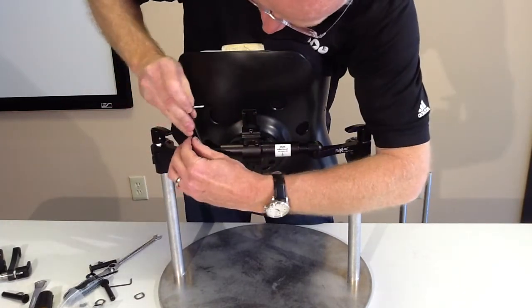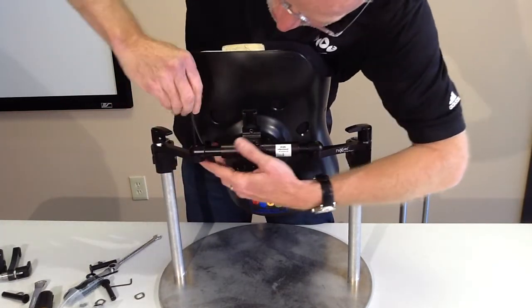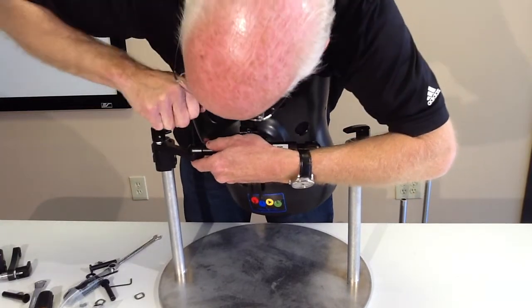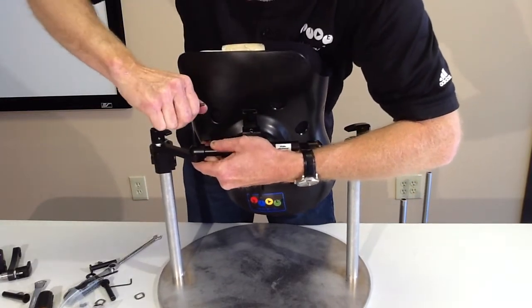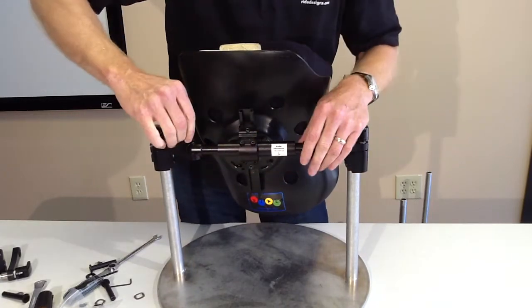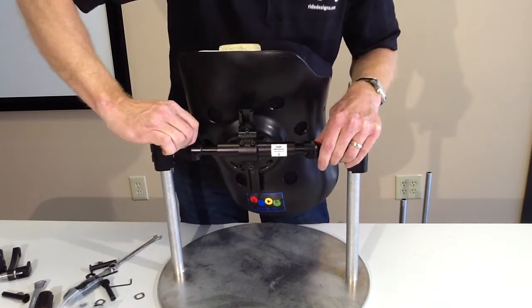Go to the other side. Same procedure. Tighten that side. Pull those down snug.